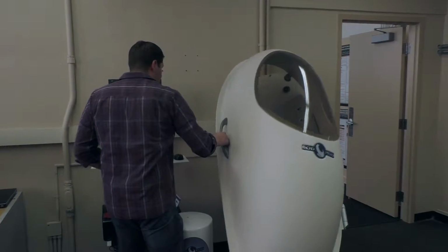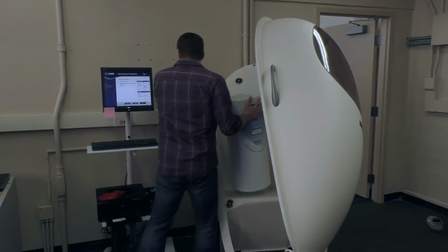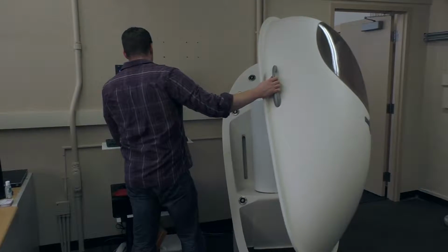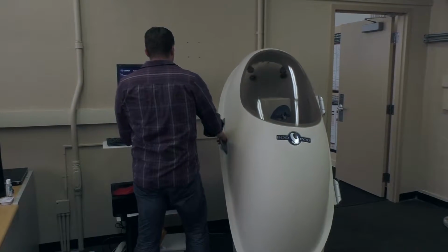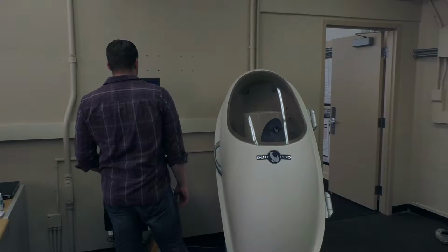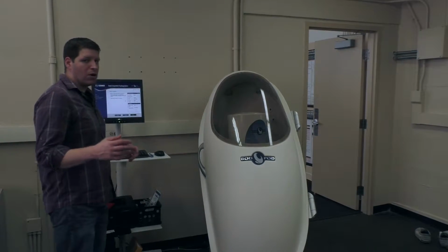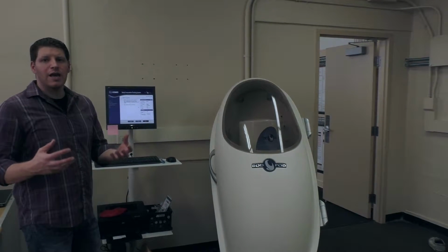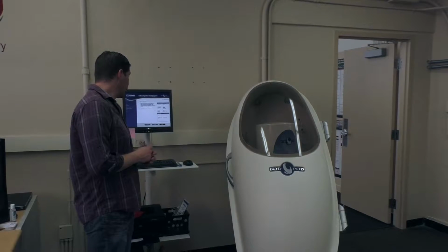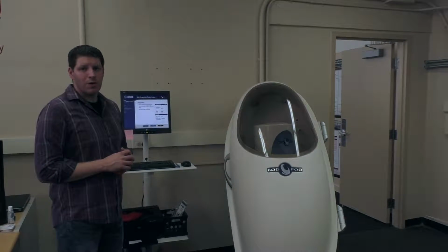Now it's asking us to do this secondary mini calibration by putting in our known volume. We'll close the door and start that measurement. And while that's happening, we just need to make sure that our participant isn't wearing any kind of jewelry or anything to that nature which could potentially influence the volume measurement or the pressure measurement. Okay, no glasses, no socks, minimal clothing. Okay, so compression gear.